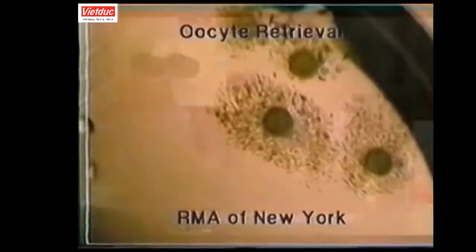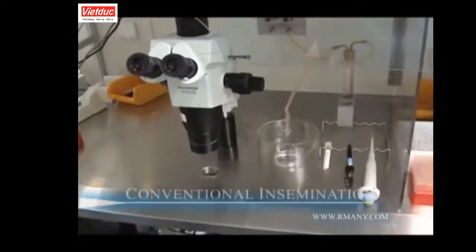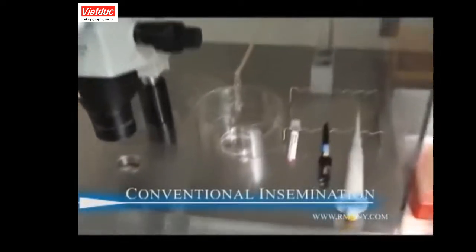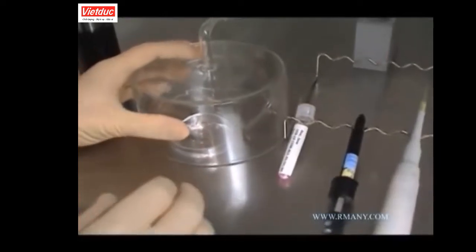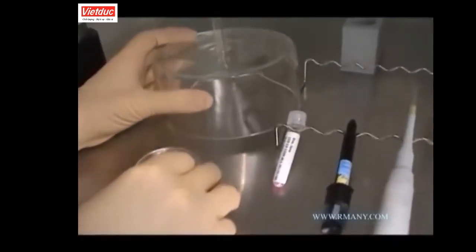If the sperm concentration and motility are deemed adequate, a conventional insemination is typically performed. An insemination is called conventional when sperm are placed next to an egg and the sperm are allowed to penetrate the egg on their own.